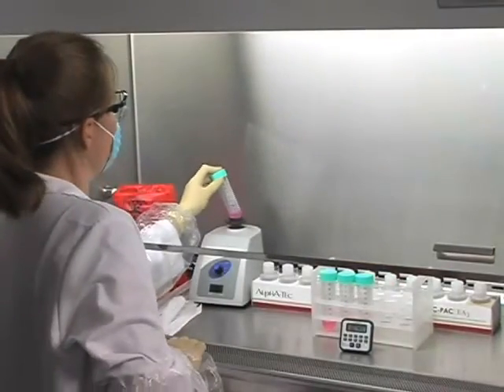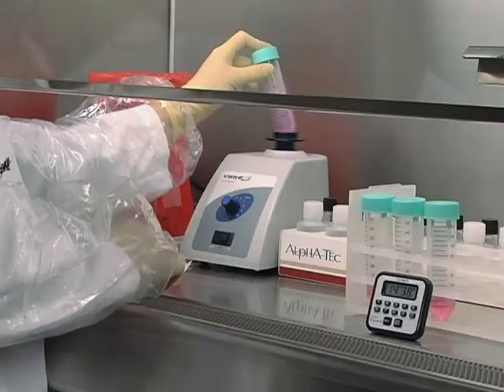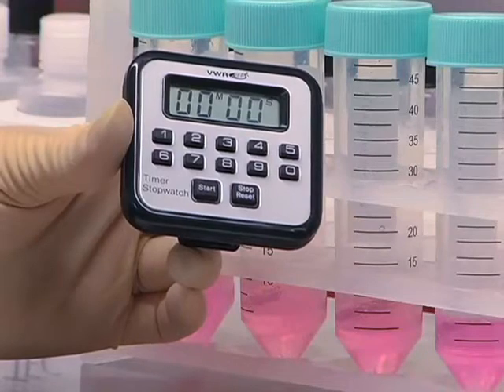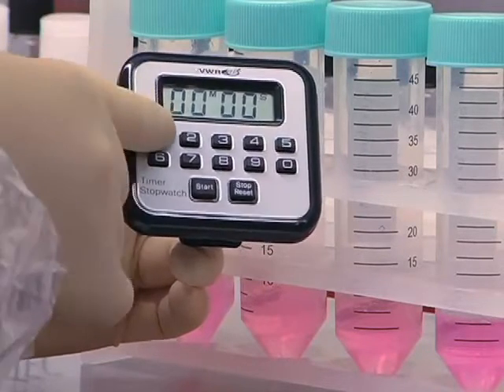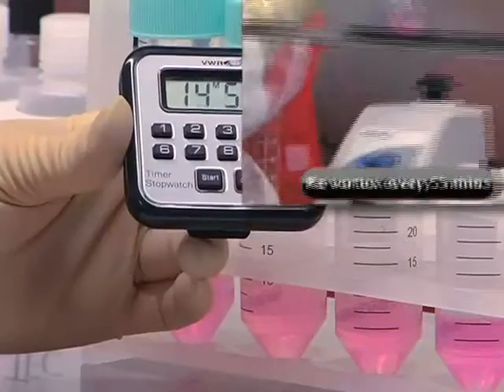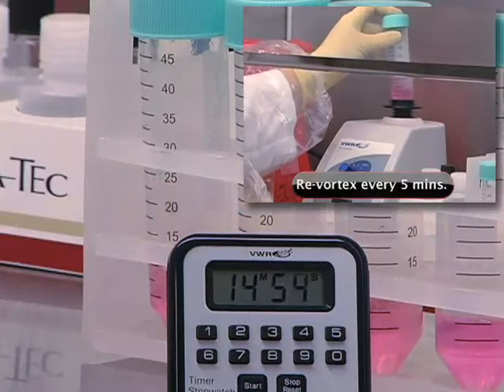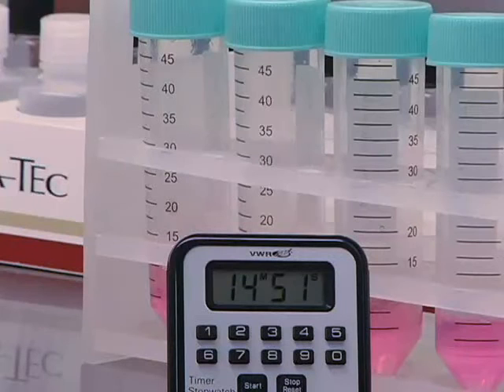Tighten the caps on the centrifuge tubes and vortex each specimen for 30 seconds. Allow each specimen to decontaminate for 15 minutes at room temperature. Revortex the specimen approximately every 5 minutes during the decontamination procedure. This will resuspend the bacteria and cells in the sodium hydroxide solution.